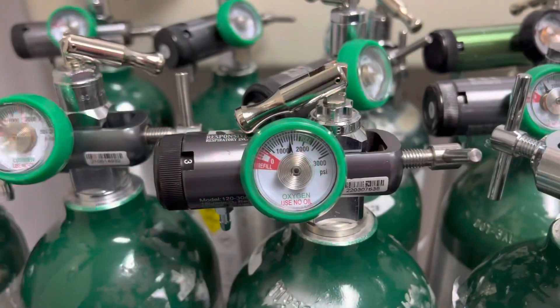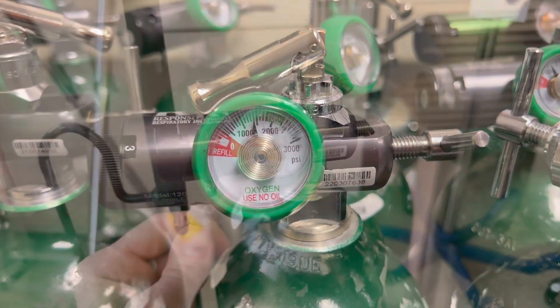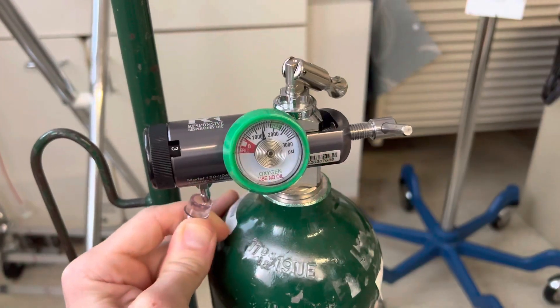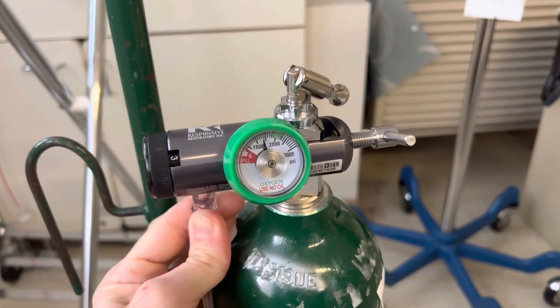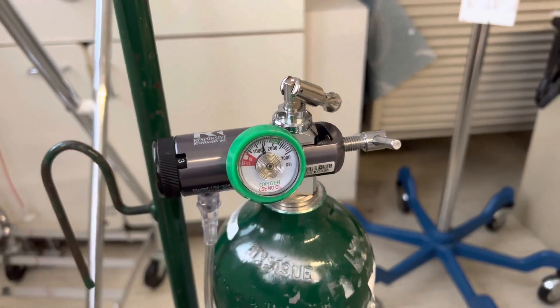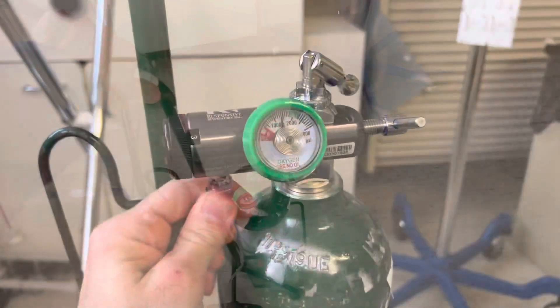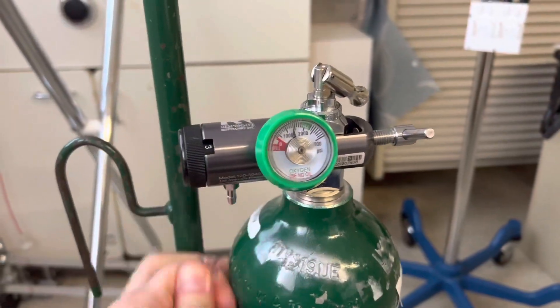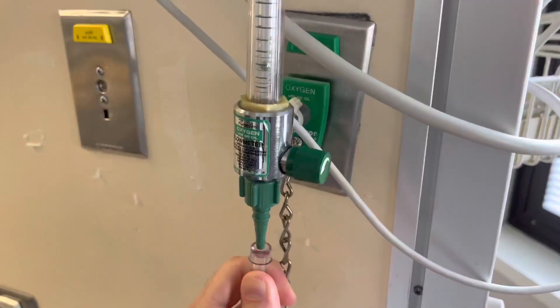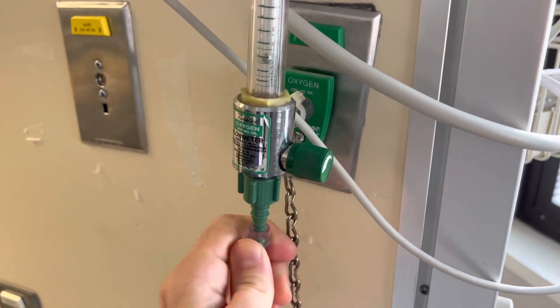Once the reading is stabilized and flow is confirmed, attach the oxygen modality and proceed with transport. If traveling to a department with a wall oxygen source, switch to that wall source as soon as possible to avoid emptying the tank.